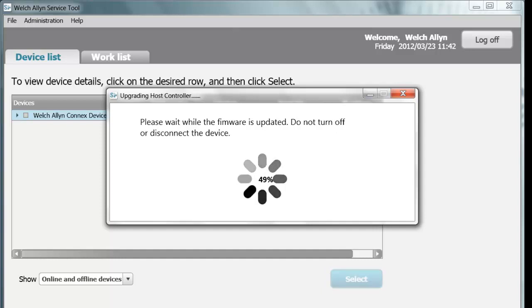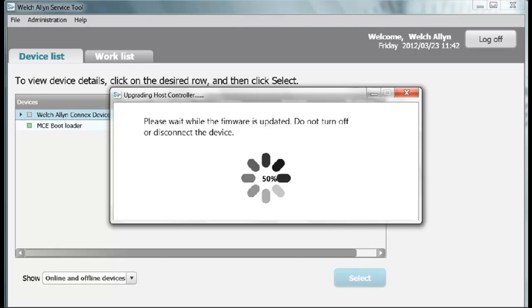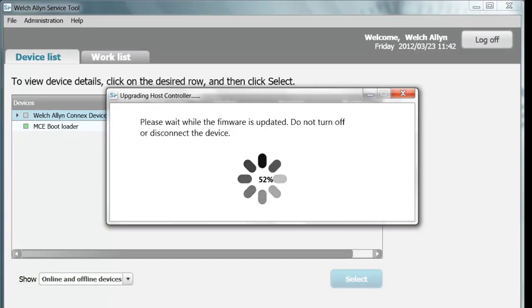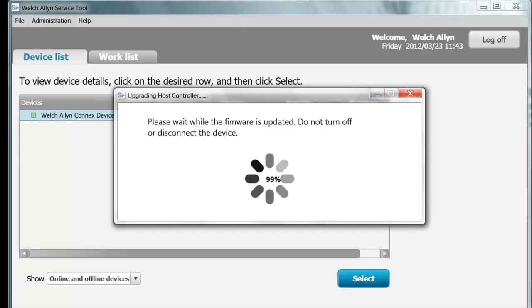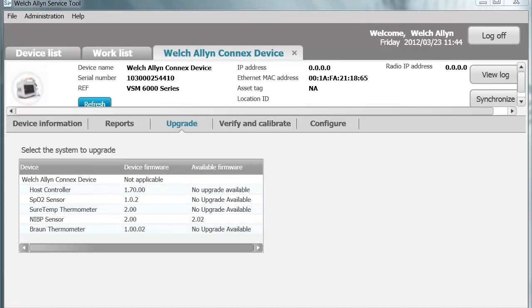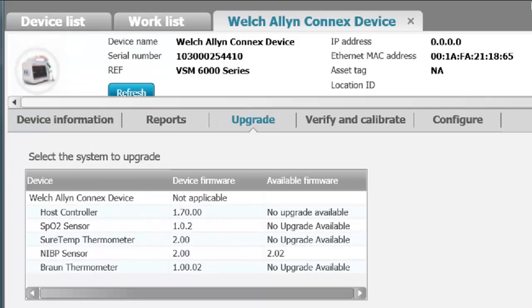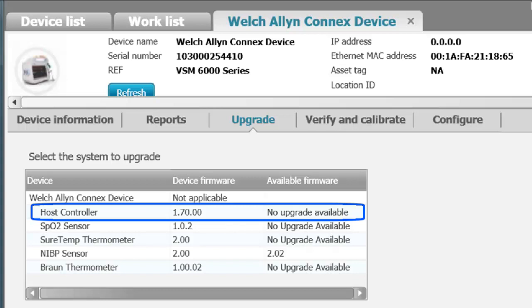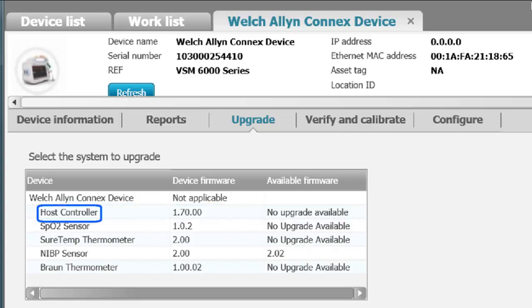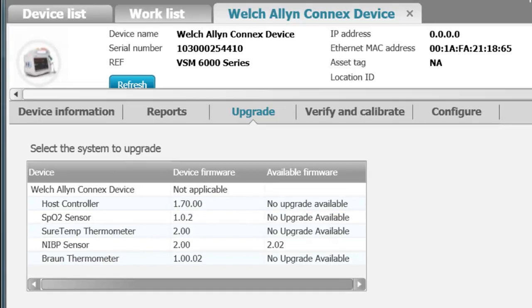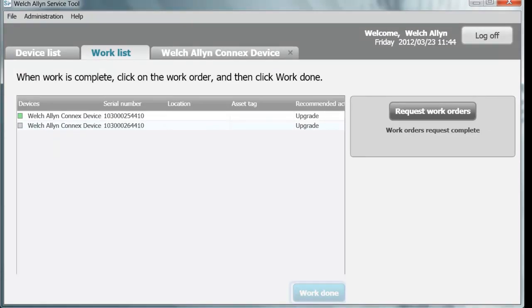The 50 to 100 percent region is the main software, and you'll notice it stays in MCE bootloader mode, which is similar to an MS-DOS application. As it reaches 99 percent, the device will shut down again and reboot, and then the software upgrade will be completed. It will stay at 99 percent until the device is totally rebooted and performs a comparison check on the software upgrade. The device tab will reopen on the upgrade tab as it completes. The host controller firmware is now at 1.70.00, and there is no longer an upgrade available.